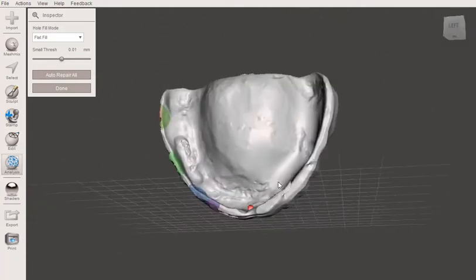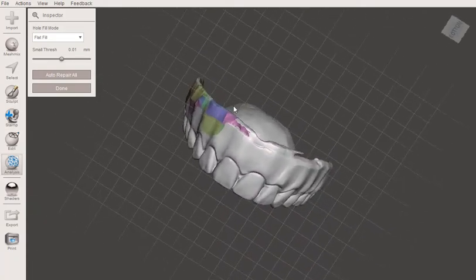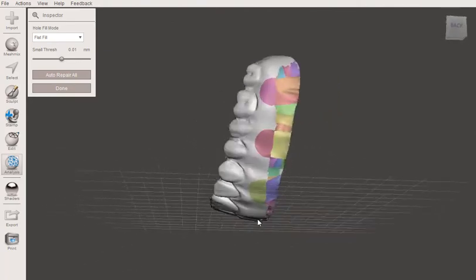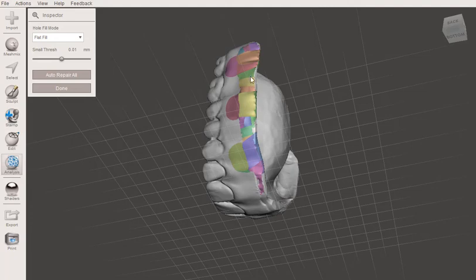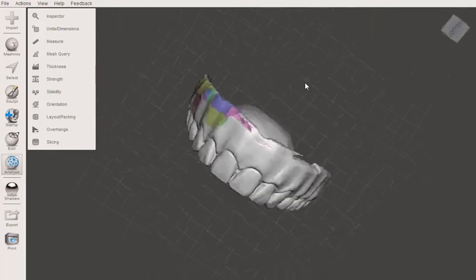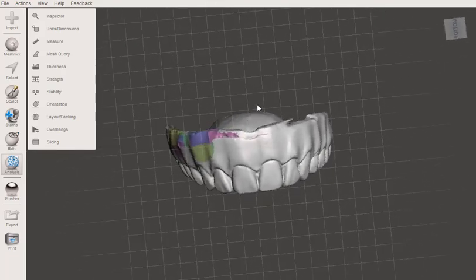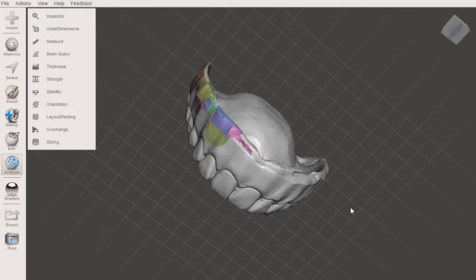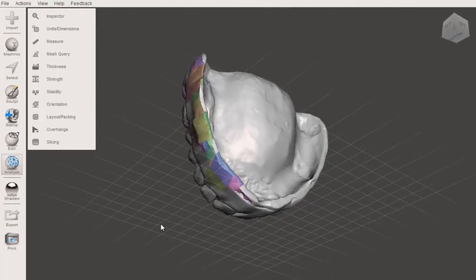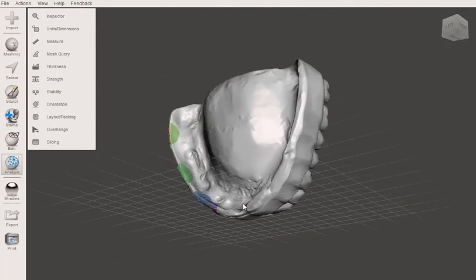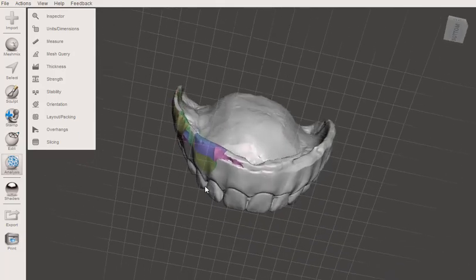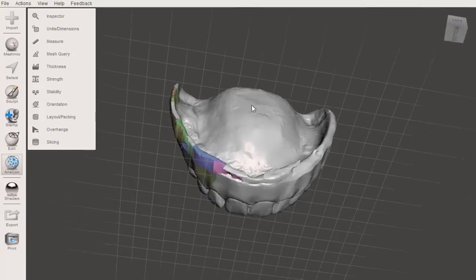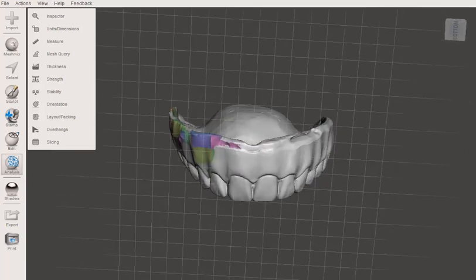Okay. There we go. And then if you wanted to, you could go in with your wax tool or your sculpt tool and smooth that out. But I'm not really going to worry about it because these are just for master impression. Basically creating these custom trays and then wax rims off of them. So no big deal. But that is how you can fix holes in a denture if you do have holes after scanning. So hope this helps.